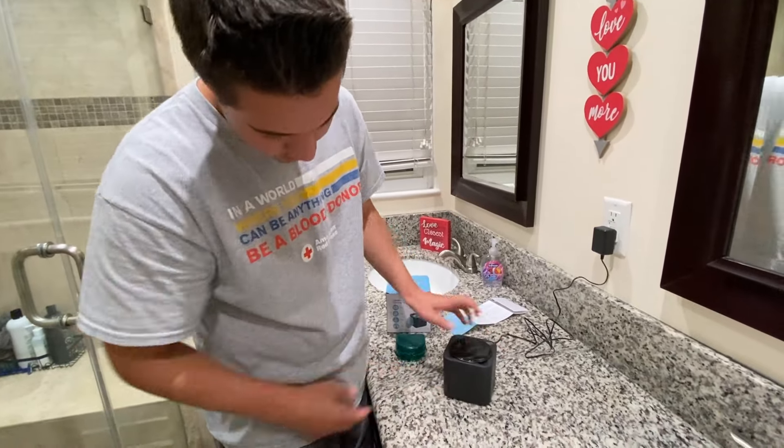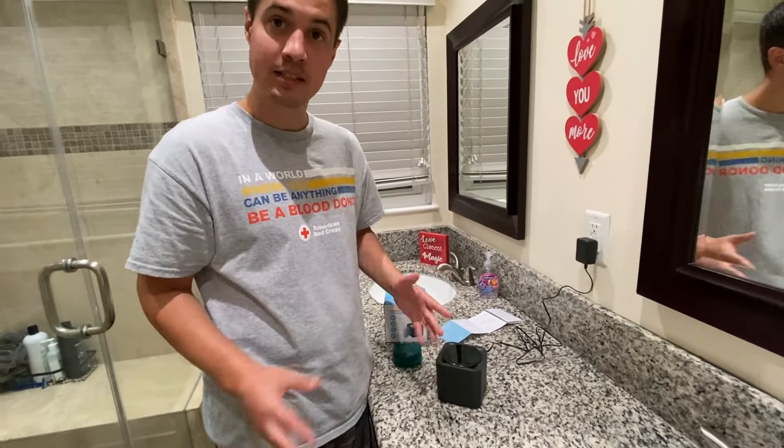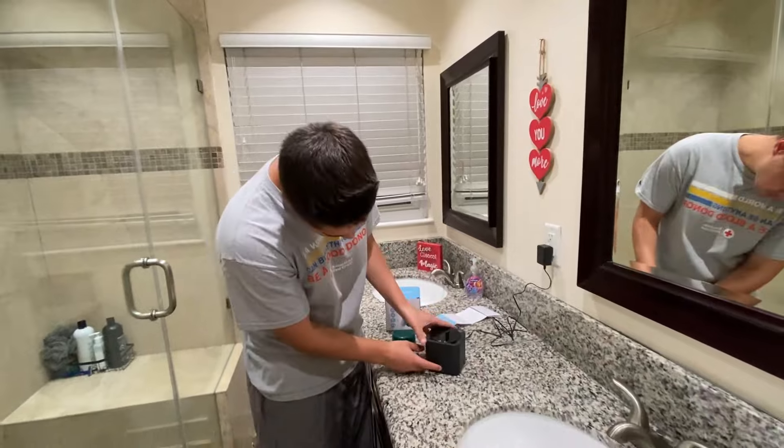You can see the lights are flashing. It has three different modes: five minutes, eight minutes, and ten minutes. However long you want it to clean, you just click the button.